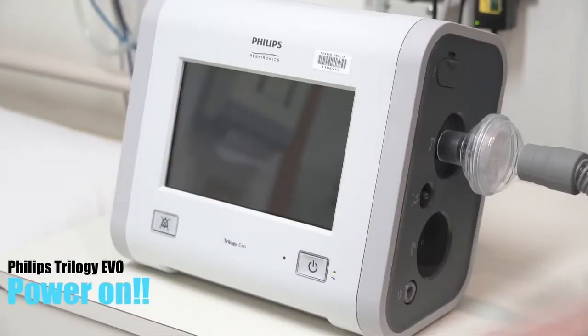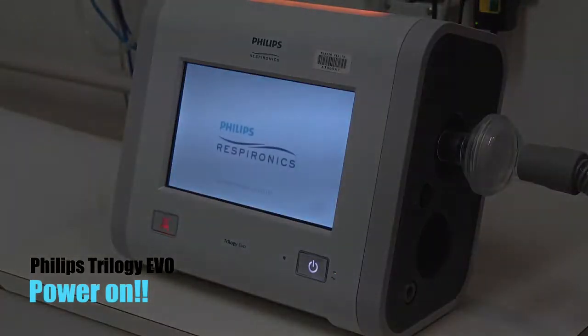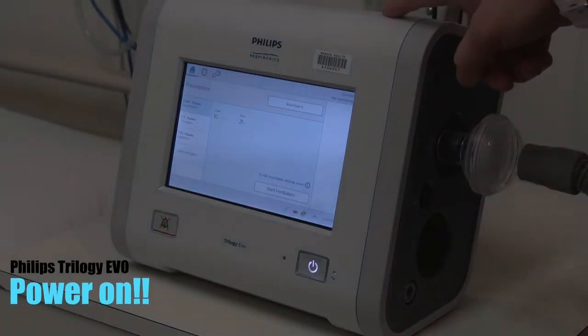To power the Philips Trilogy, press the power button at the bottom right of the monitor. Note the alarm bar on top of the monitor.